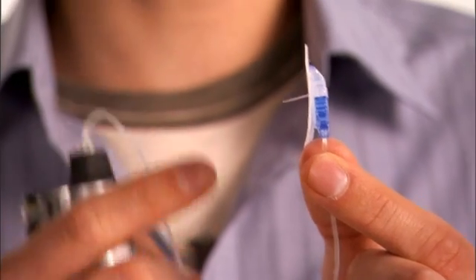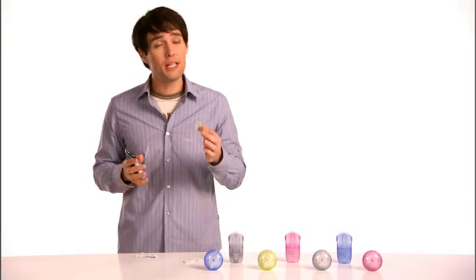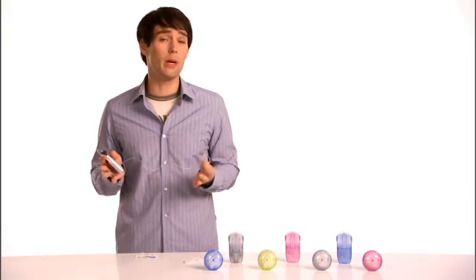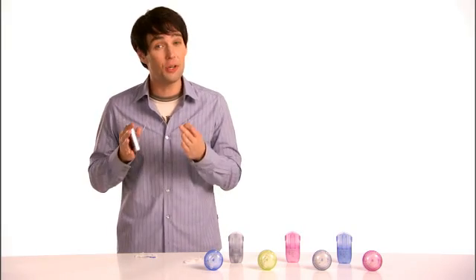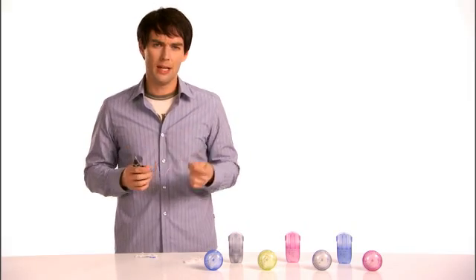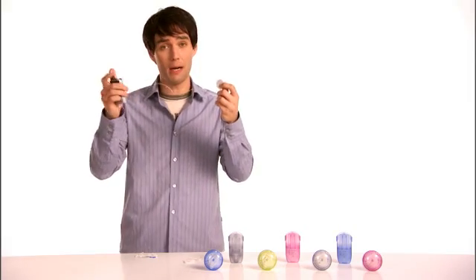You see this? It's called a cannula. That's a fancy way of saying really tiny tube. It's placed just beneath your skin with the help of a quick, simple insertion device and held in place with adhesive. Now it's connected to another tube, which in turn connects to your pump.